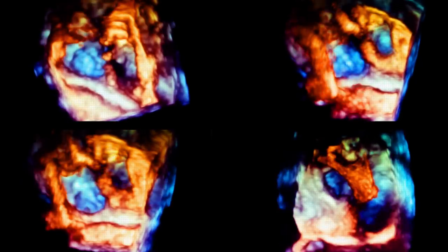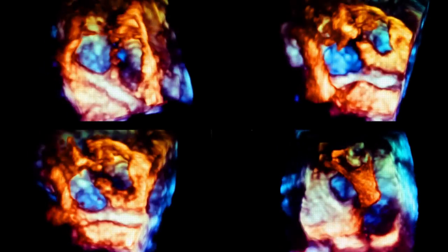3D ultrasound is a recent development in medical technology, allowing doctors to observe babies and hearts from all directions and more accurately diagnose patients.